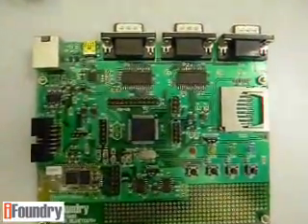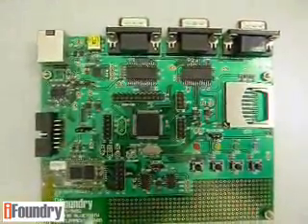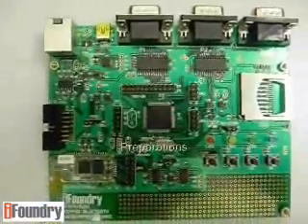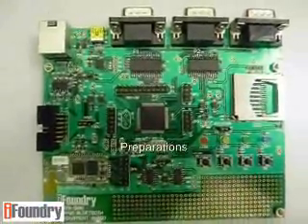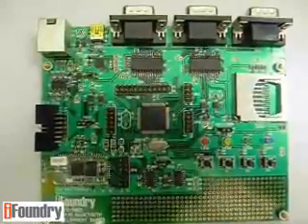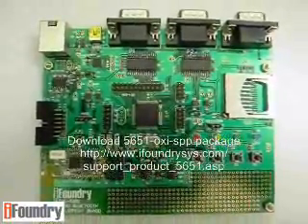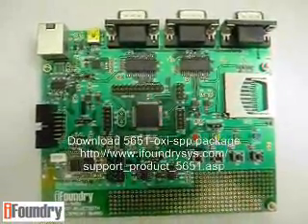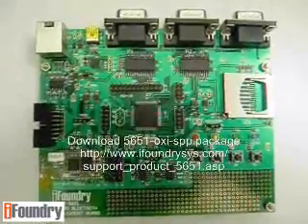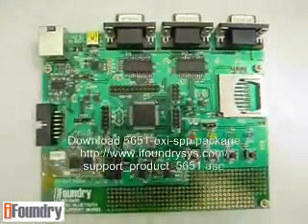In this video, we are going to demonstrate a Pulse Oximeter application using IFC's 5651 board. There are a few things that you need to prepare. Firstly, you will need to download the 5651 OxySPP package from the link shown on the screen. In this package, you will find the firmware and software components required to do this demo.